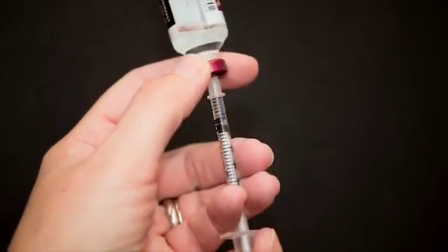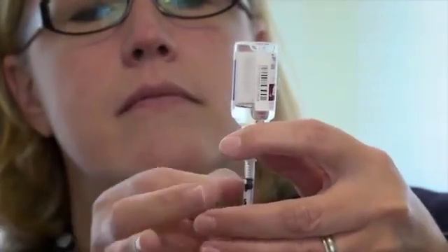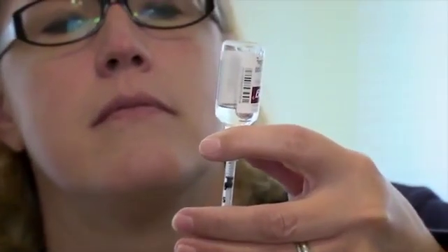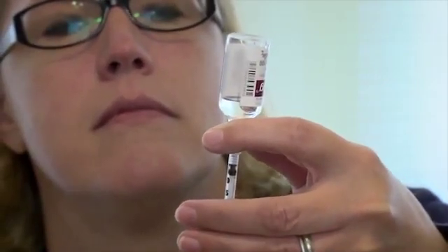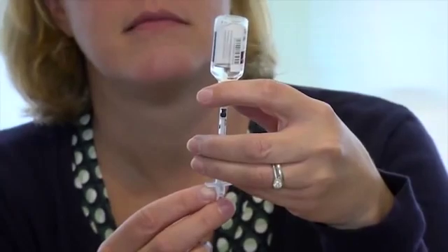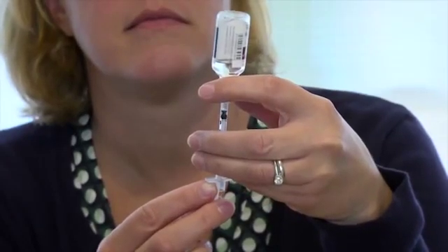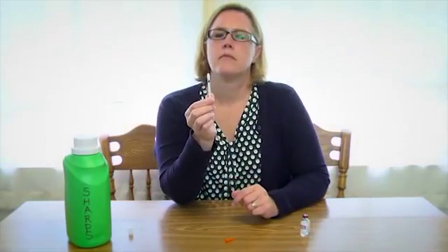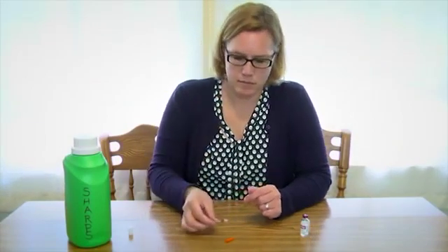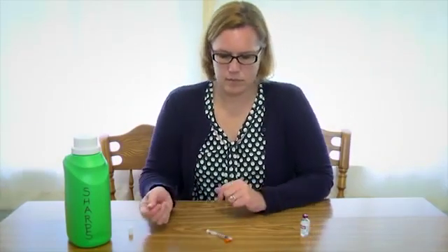If you see bubbles in the syringe, gently tap on the syringe so the bubbles move to the top. Push the syringe to release the bubbles back into the bottle of insulin. Once again, with the needle in the insulin, pull the plunger back to the unit mark for the insulin dose that has been ordered for you. Check that the dose is correct. Set the syringe down without letting the needle touch anything.